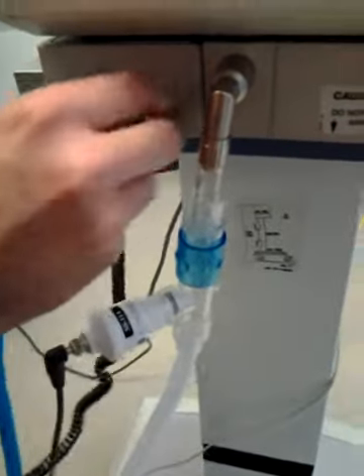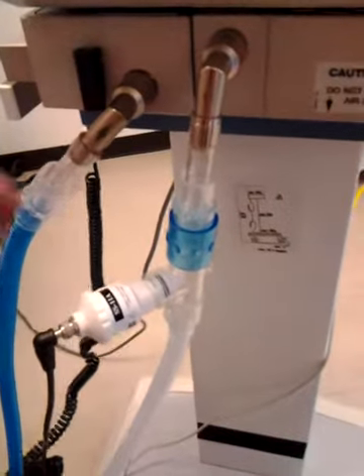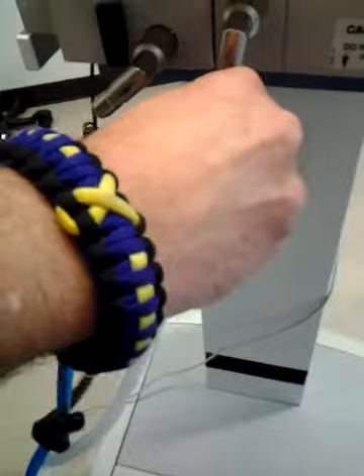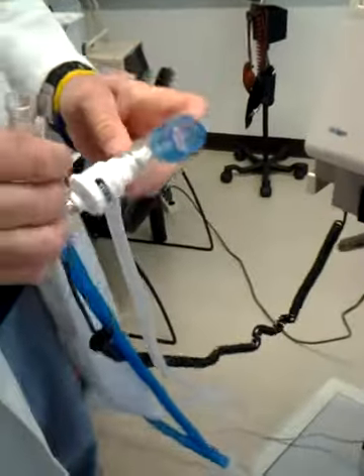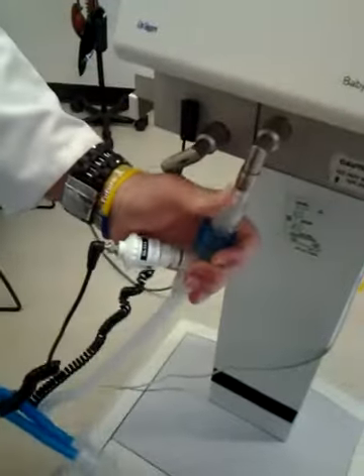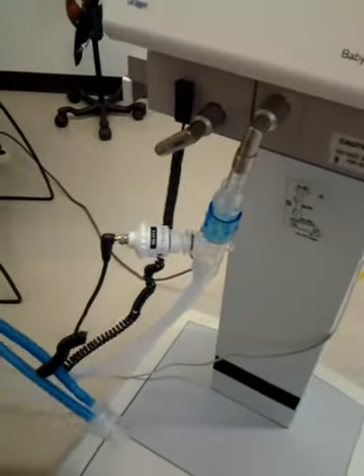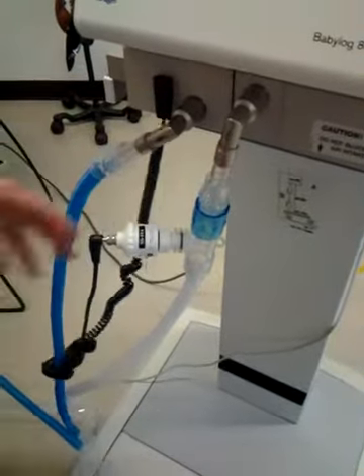This might be where it's leaking in here, so pull this apart. Oh, that's why it's this way. Most vent circuits now are color coded blue and white. Blue to the patient, white to the expiratory. So I'm going to get the pieces out of the thing so we can change it so it's set up right.